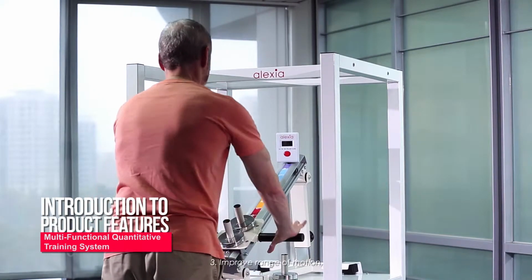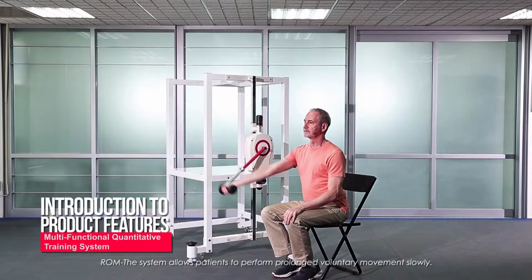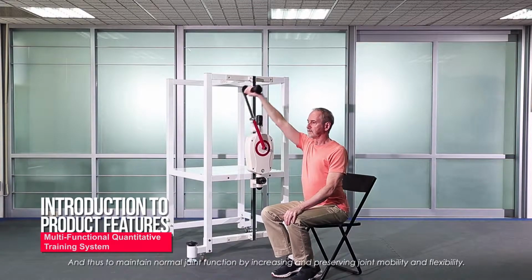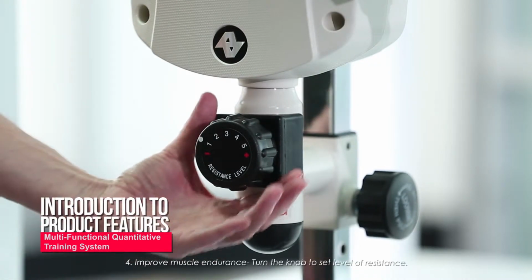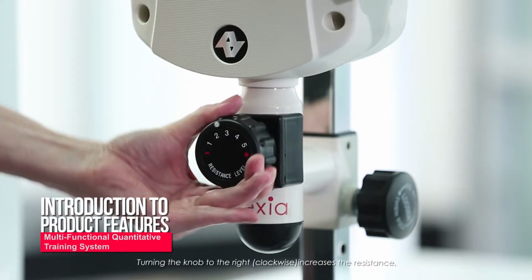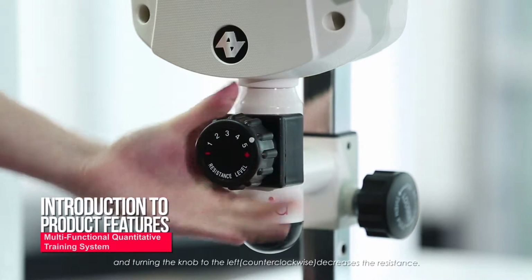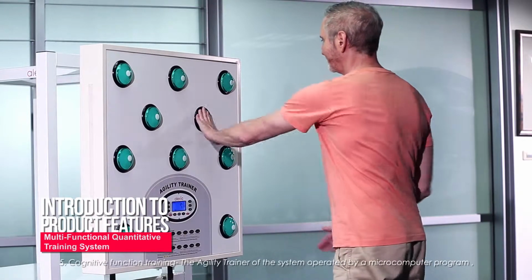3. Improve range of motion, ROM. The system allows patients to perform prolonged voluntary movements slowly and thus to maintain normal joint function by increasing and preserving joint mobility and flexibility. 4. Improve muscle endurance. Turn the knob to set level of resistance. Turning the knob to the right, clockwise, increases the resistance, and turning the knob to the left, counterclockwise, decreases the resistance.